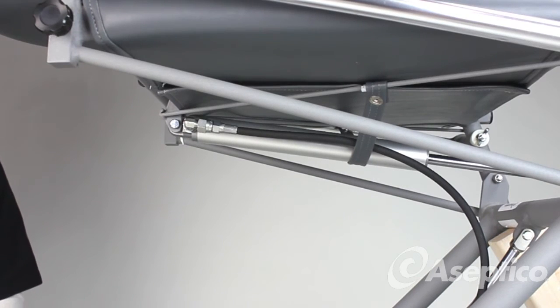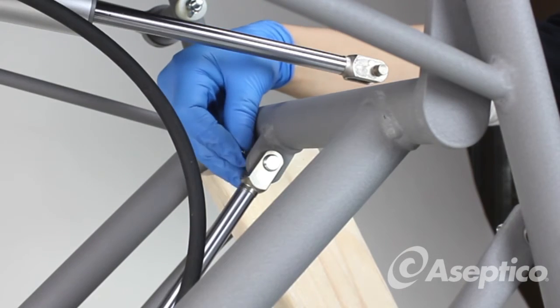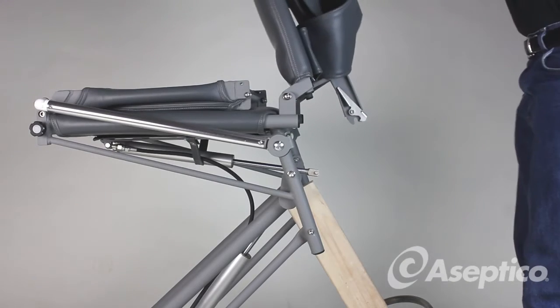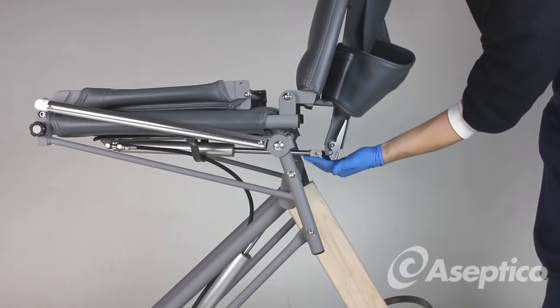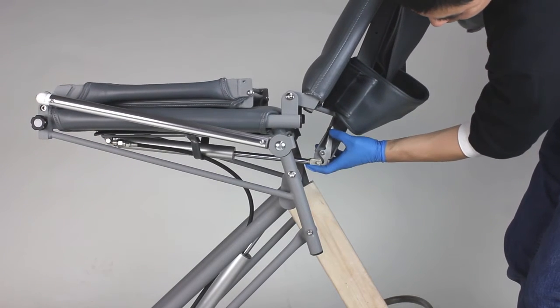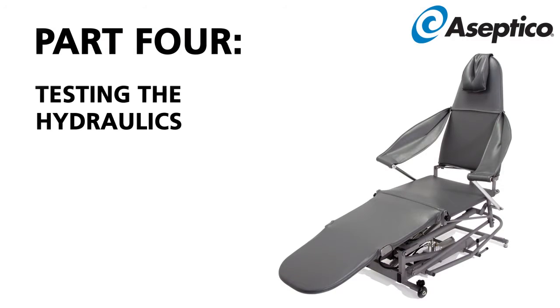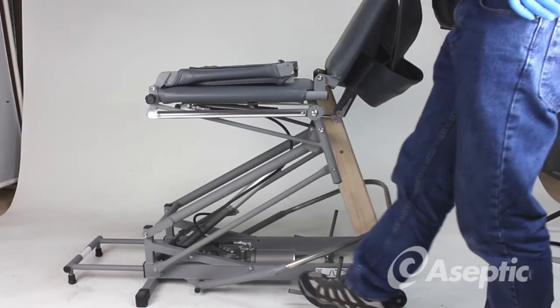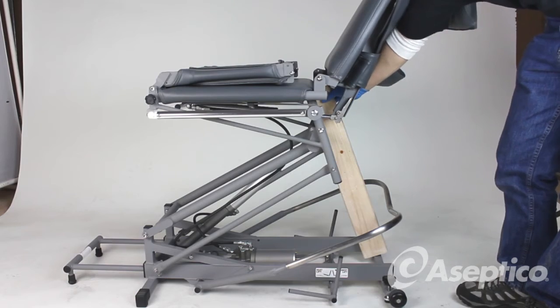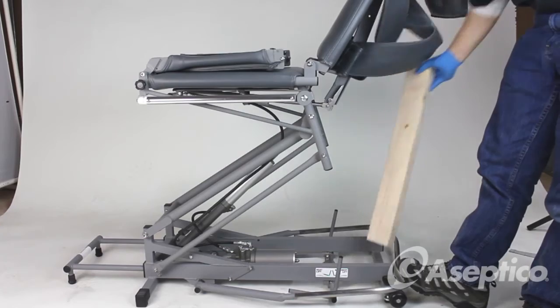We will lock the cotter pins in place after testing. Place the other cotter pins and make sure they are inserted into the clevis pins. To install the backrest, pull the backrest back, align the pins, and push forward. Make sure the selector lever is on the seat. Push up and hold the support — make sure it doesn't fall. Then remove your support.